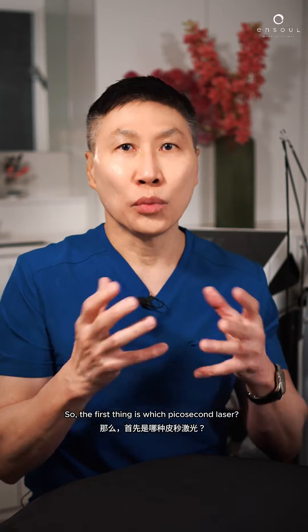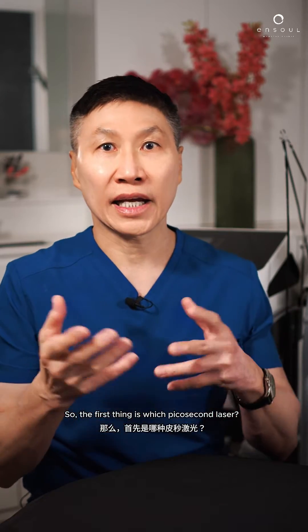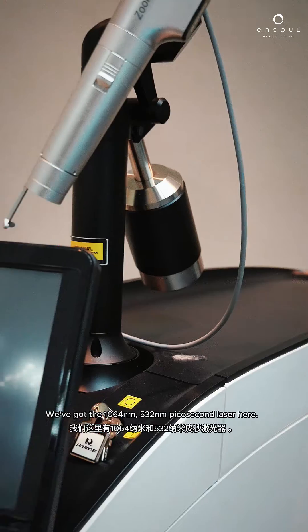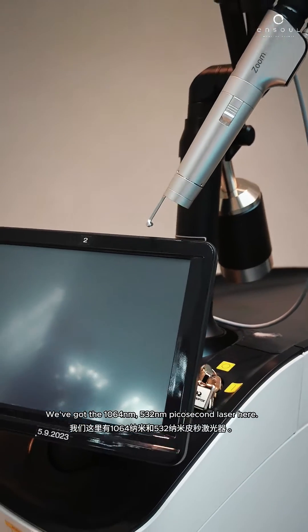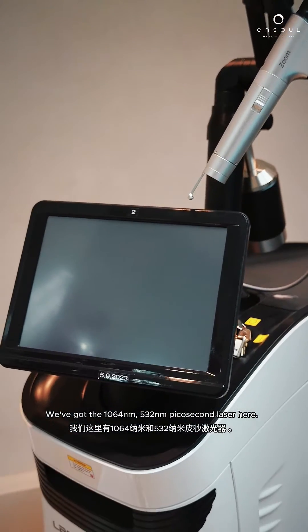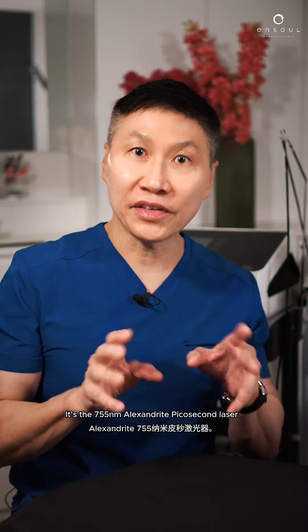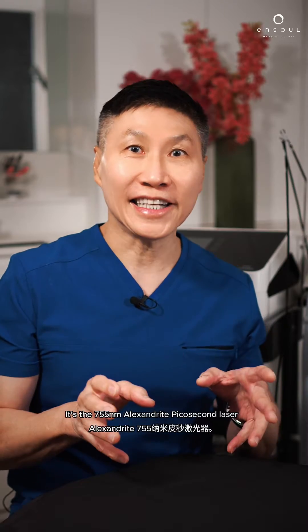So the first thing is, which picosecond laser? We've got the 1064/532 picosecond laser here. Let me show you my other laser — it's the 755 Alexandrite picosecond laser.